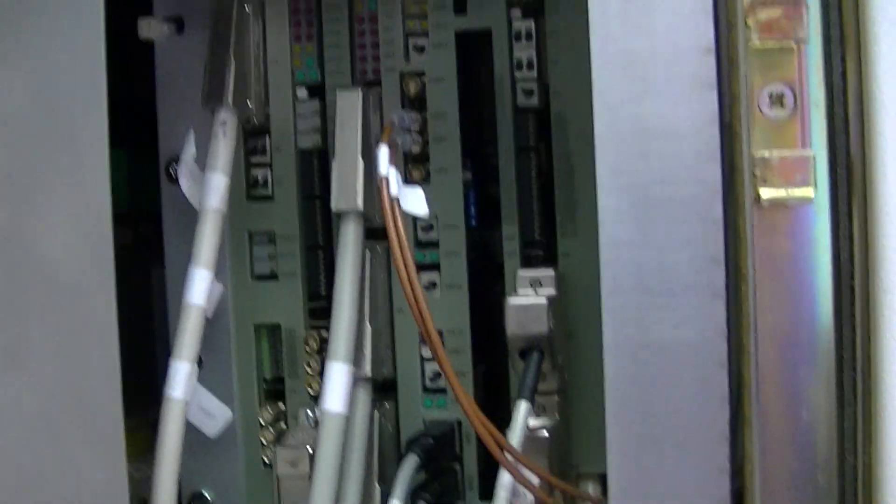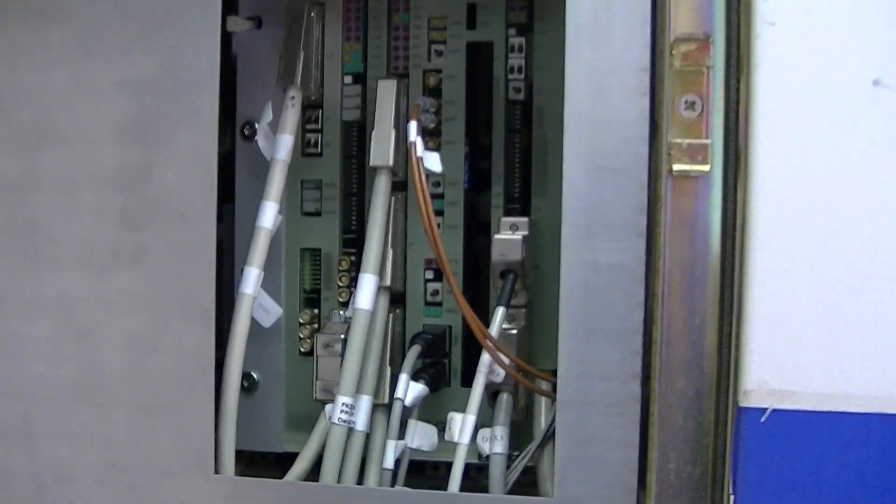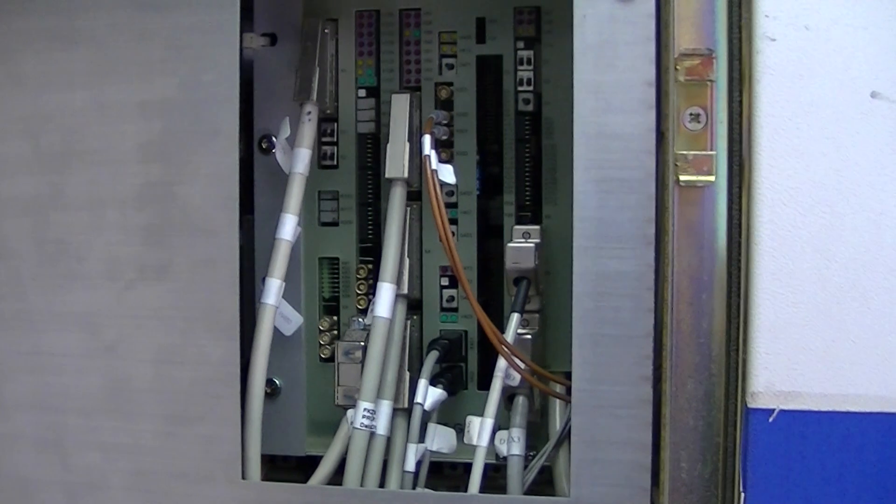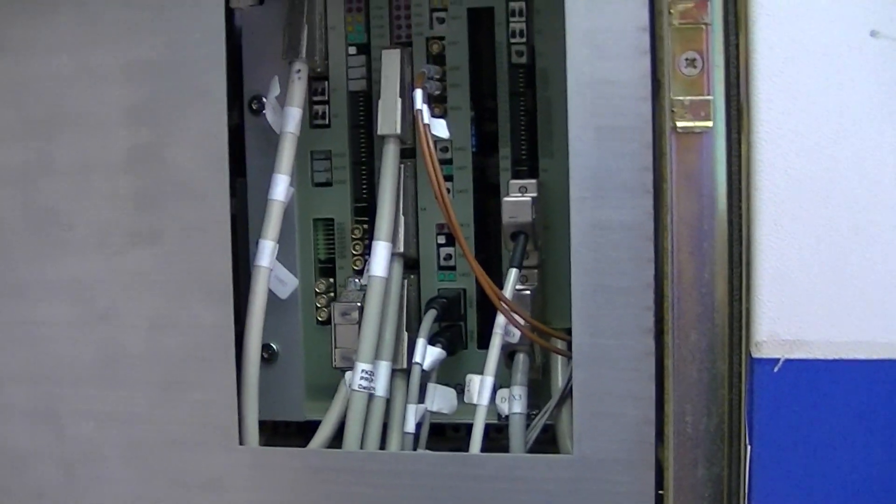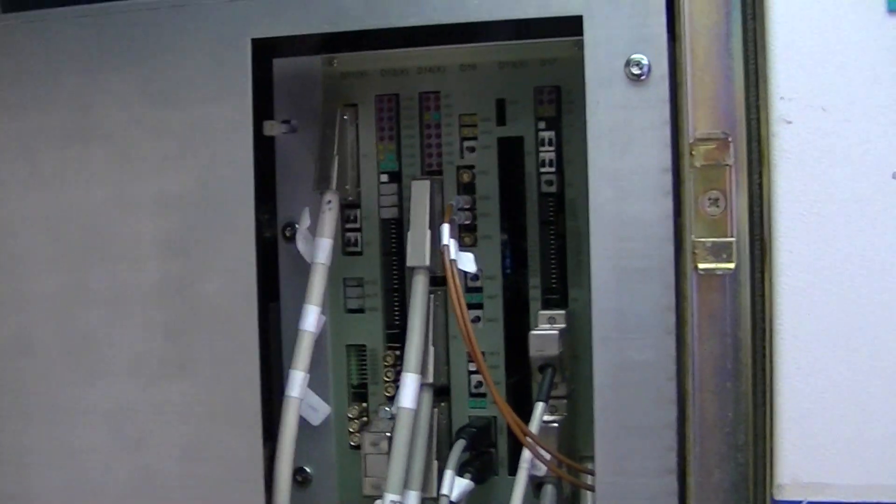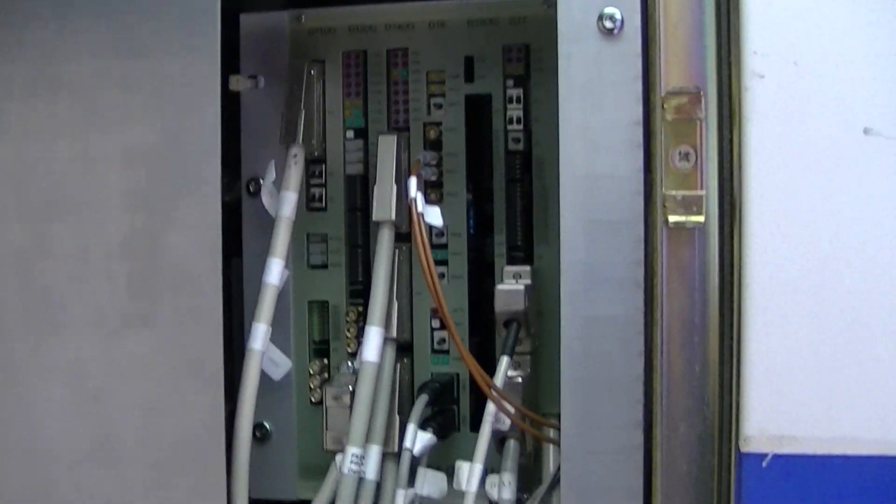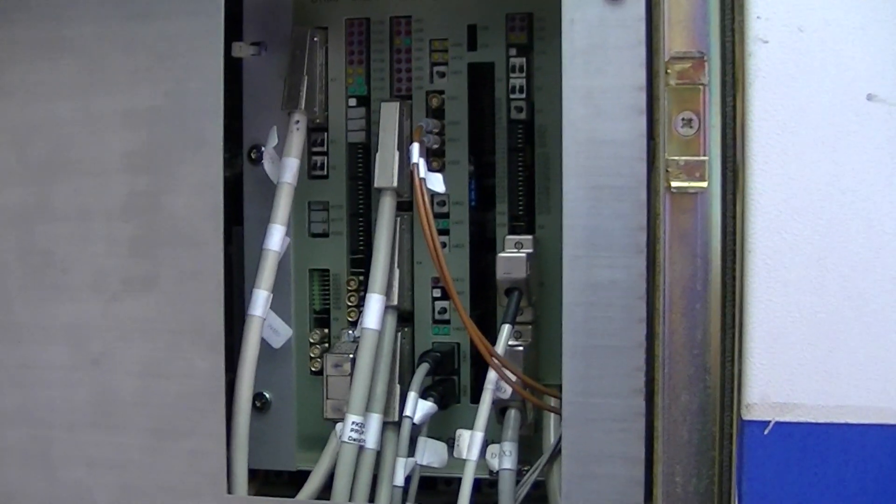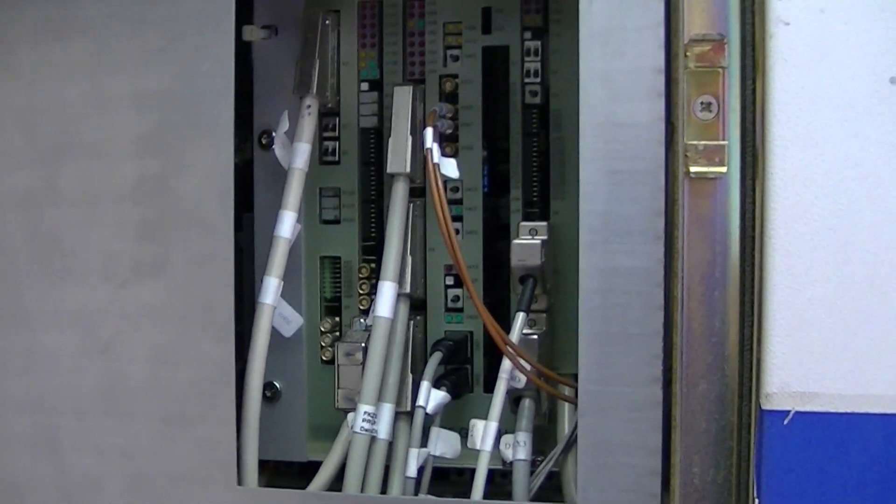Today on the channel we're going to be going over some of the stuff you'd see on a four-channel symphony magnet. We're going to go over the gradient cabinet right now in the upper portion right here. I apologize for the camera, I don't have a tripod today. I'm on a trailer.